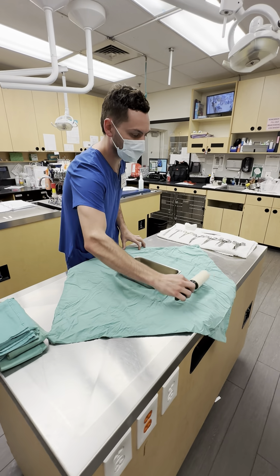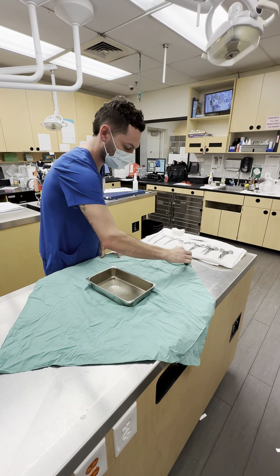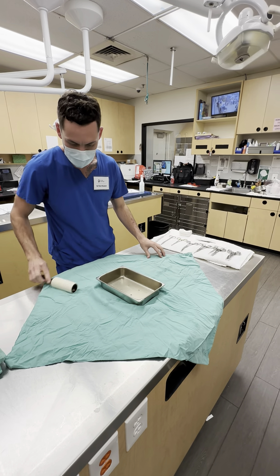I've been doing this — making sure there's no lint, there's no fur — for about five minutes.